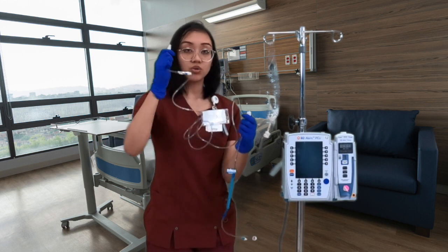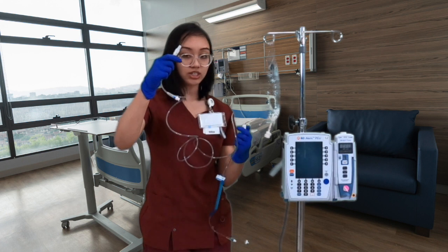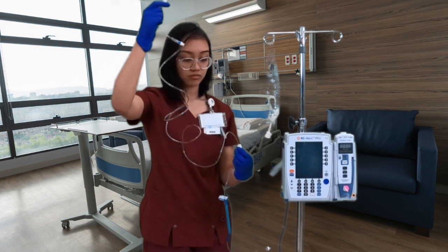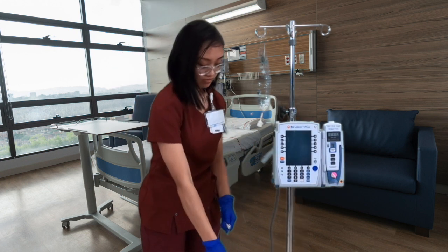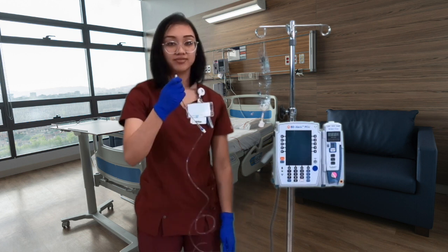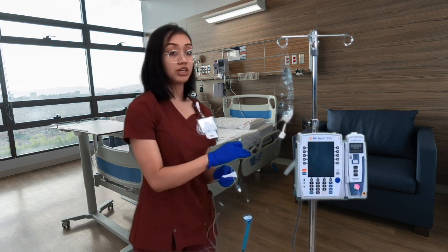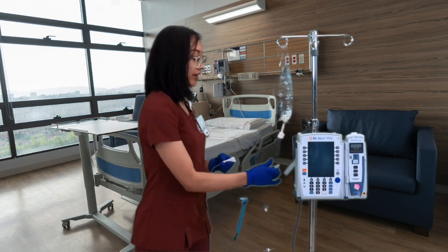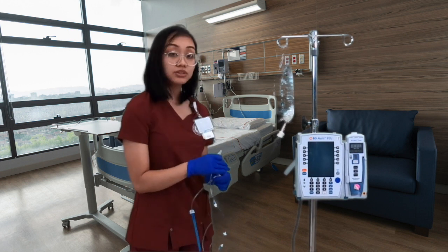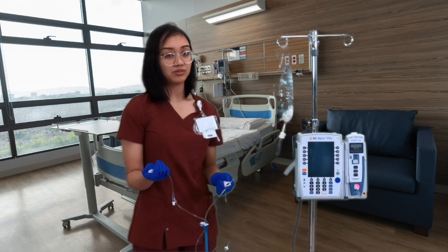So once we get to near the top part, I'm actually going to be near a trash can to let the excess fluid go through. Alrighty, the final step before we connect to the patient is to double check our line. We want to make sure that everything is clear and we do not have any bubbles or anything like that. We also want to make sure that our fluid is clear and not cloudy.